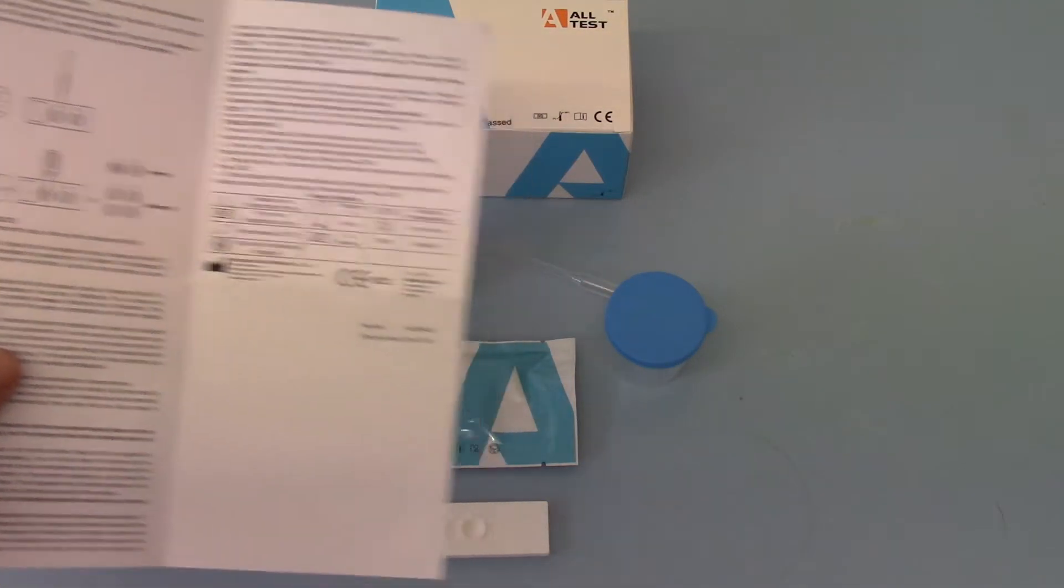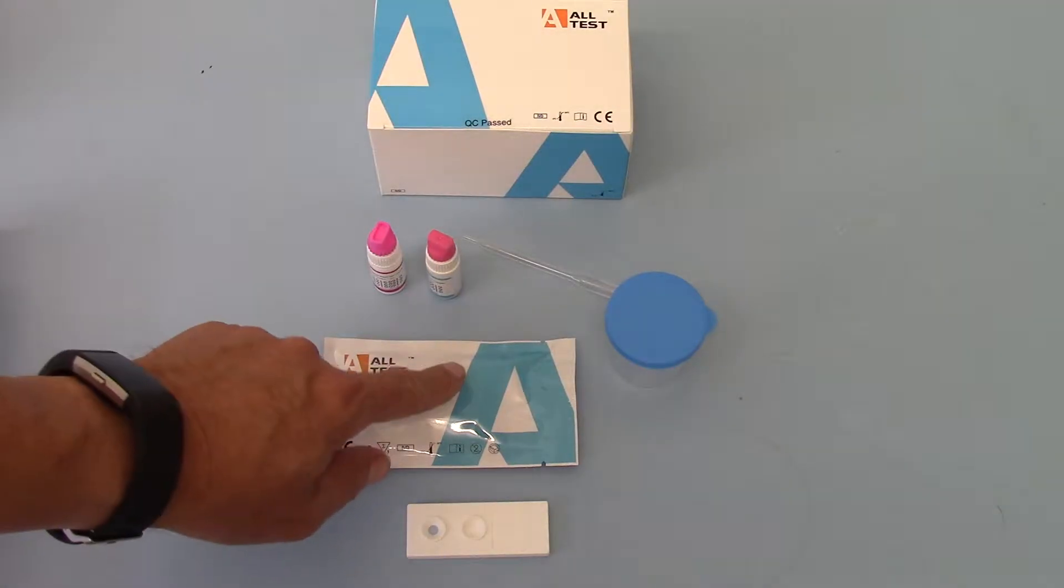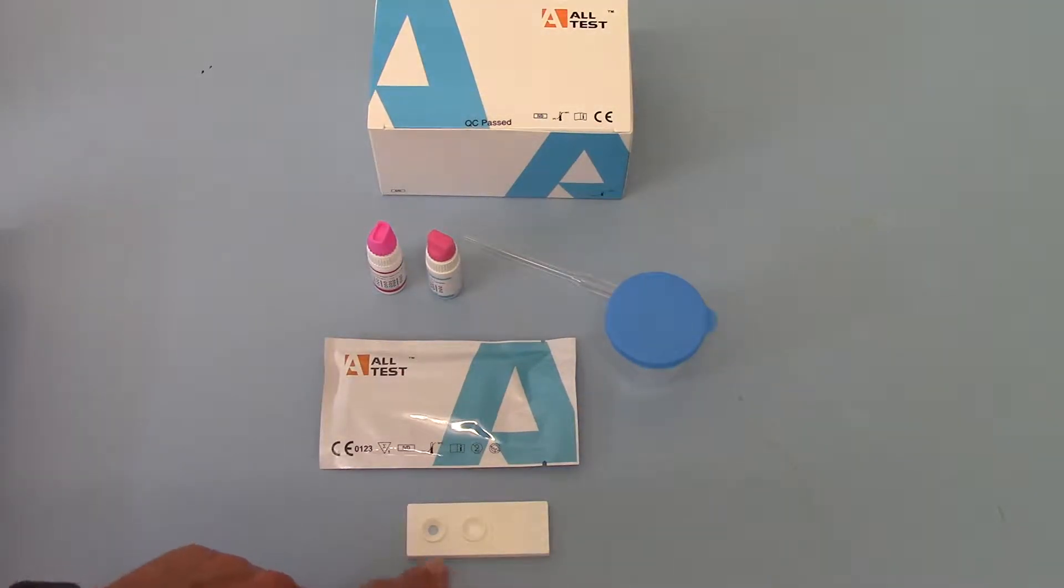A full data sheet or instruction set which I've got here and once you open this pouch you get this test cassette with sample A and sample B zones in it. B is your comparison color against which you read your A sample reading result.